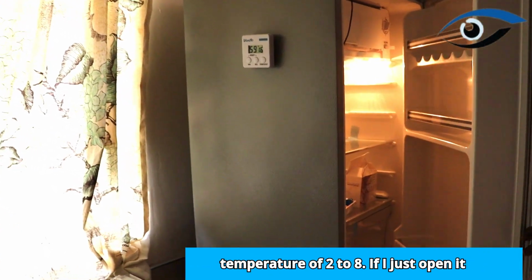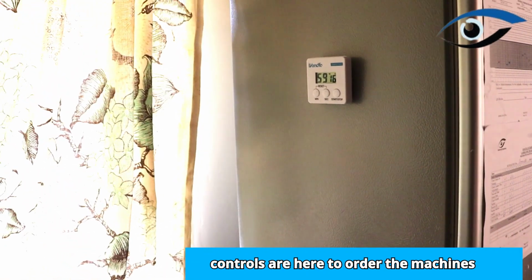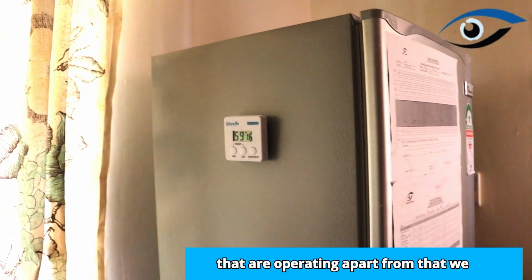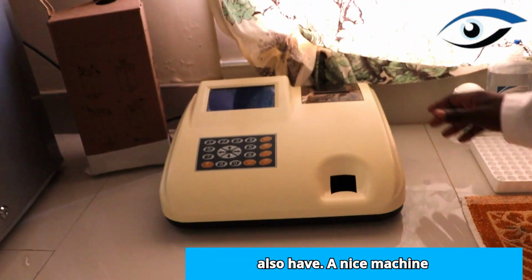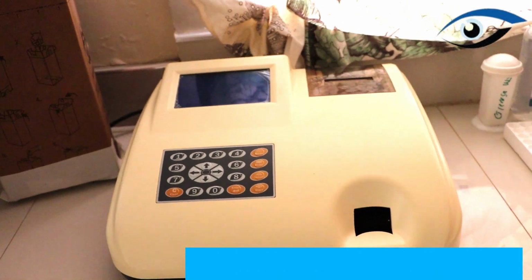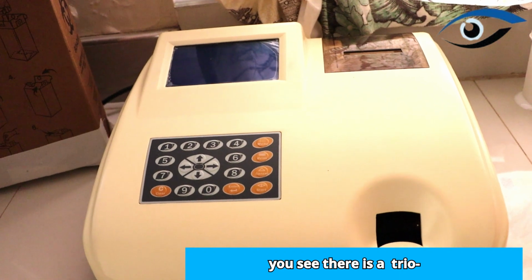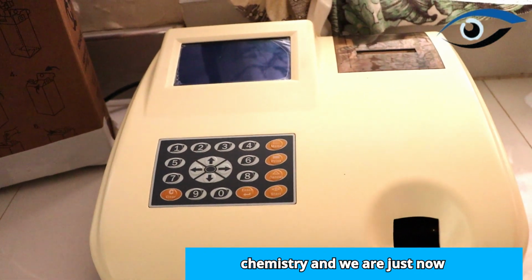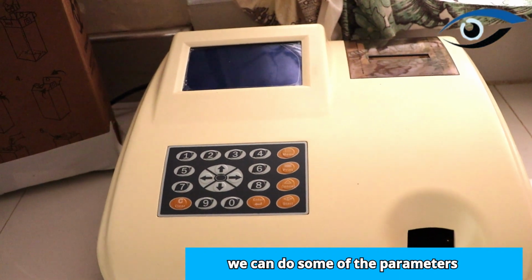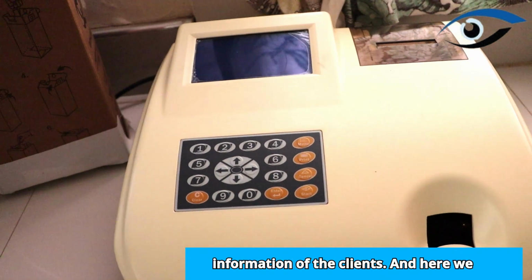If I just open it, some of the reagents and some of the controls are here, and the machines are operating. Apart from that, we also have a nice machine here. You can do a liver function test, and also the kidney function test, that is the UEC. It is a chemistry analyzer, and you can do some of the parameters, and it also helps give the results to the clients.